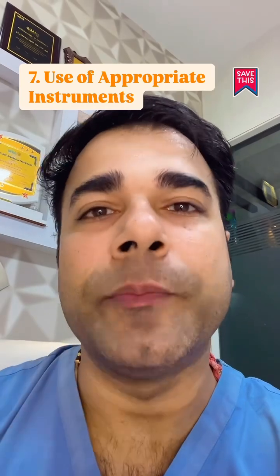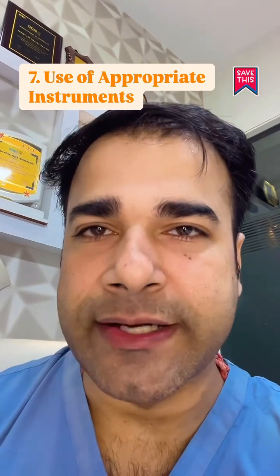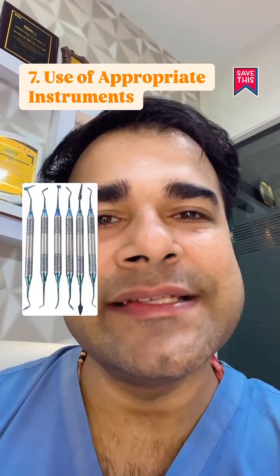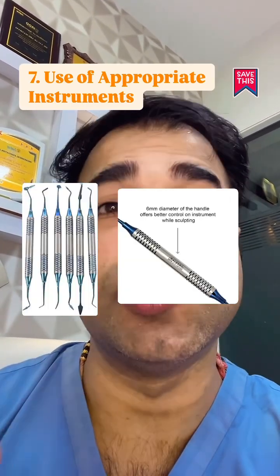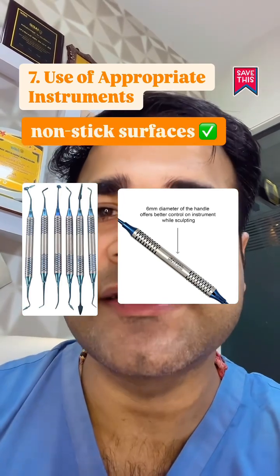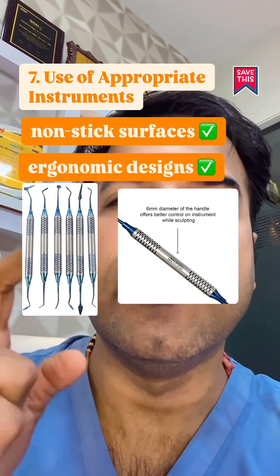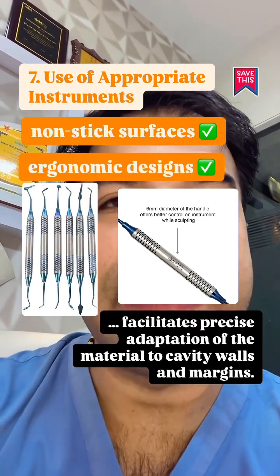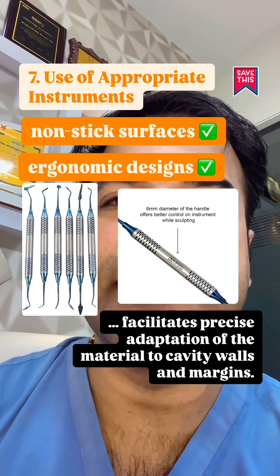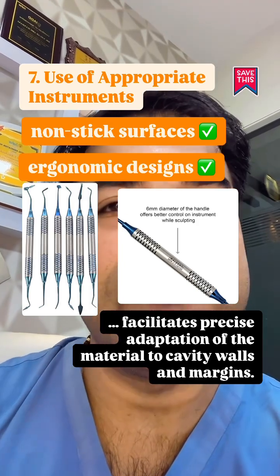Use of appropriate instruments: utilizing instruments designed for composite placement, such as those with non-stick surfaces and ergonomic designs, facilitates precise adaptation of the material to the cavity walls and margins.